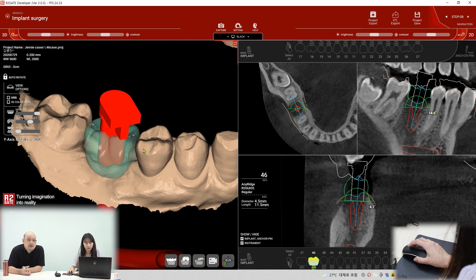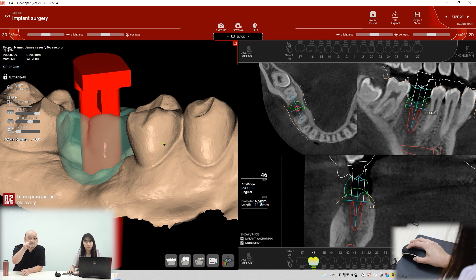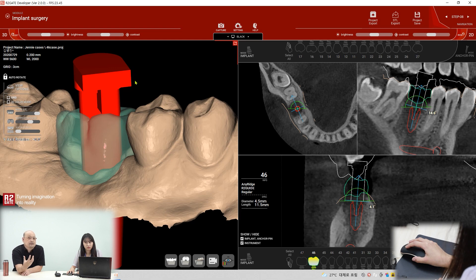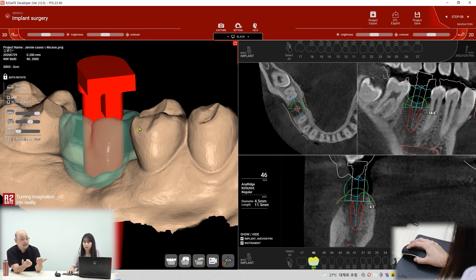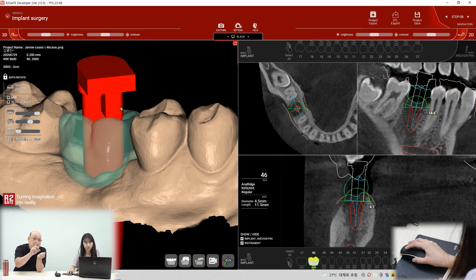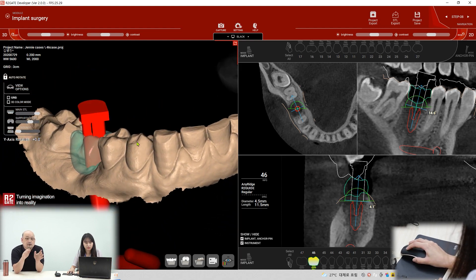As you can see, the T-shape — that is the window. You have to make sure the window direction is correct. That's the posterior part, so if you see that window easily you should rotate the window direction to the front direction. Yes, that's the front direction — then you can see the window more clearly.